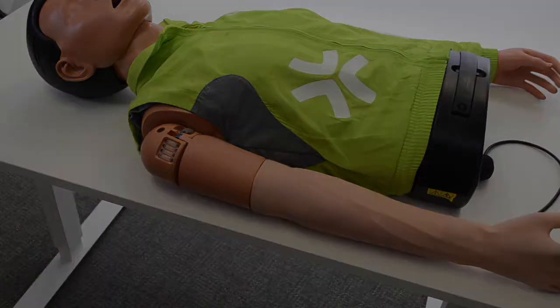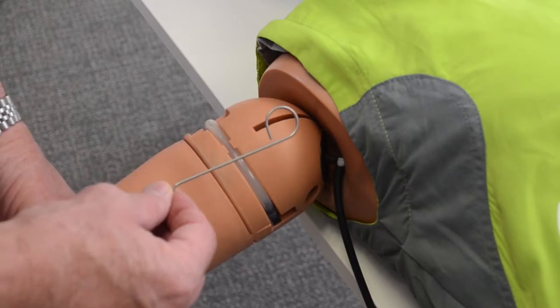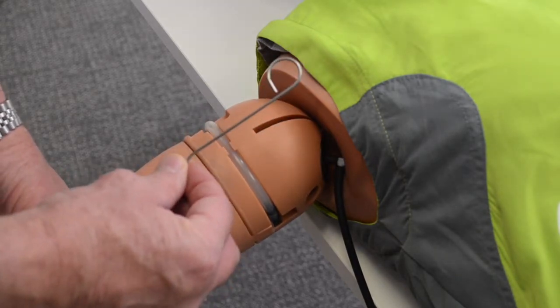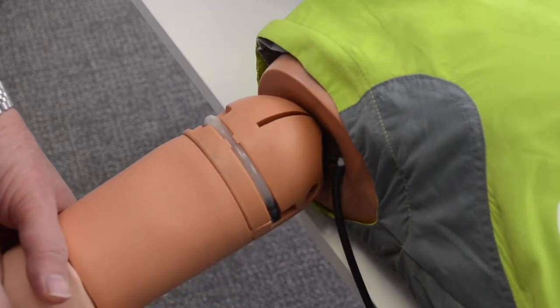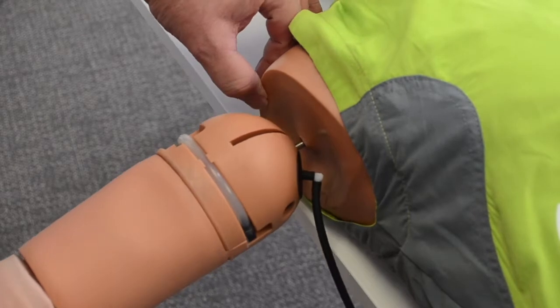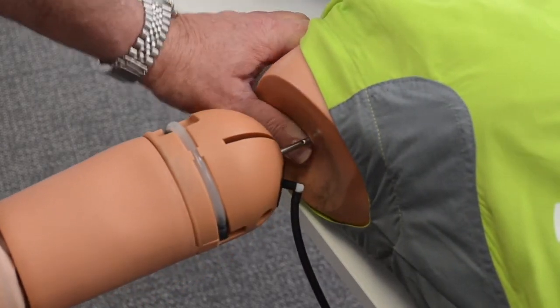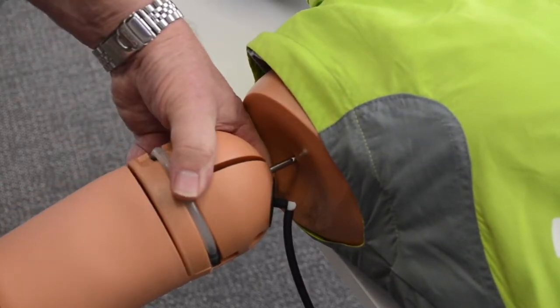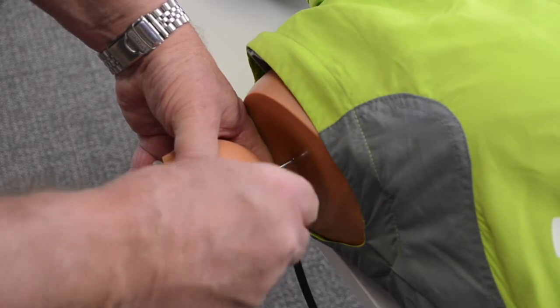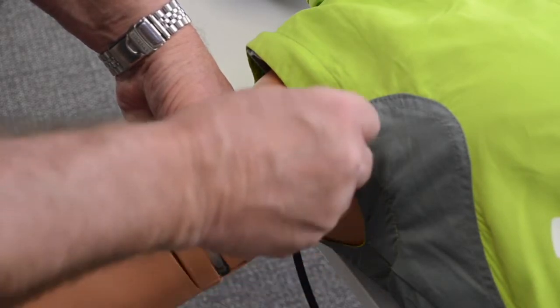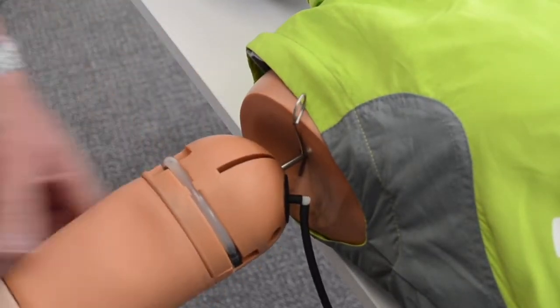To take the arm off, here's the pin that comes in the box. Pull the arm out to expose the piston, and there's a hole there. We're going to insert the pin in the hole of the piston as a retaining clip that'll hold that out.